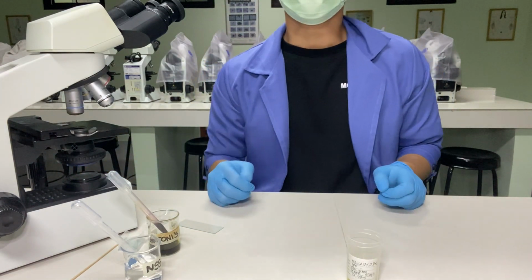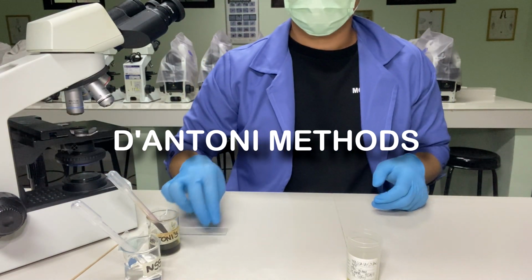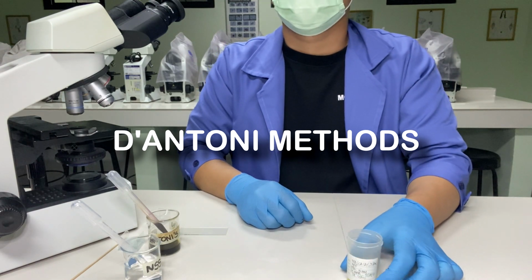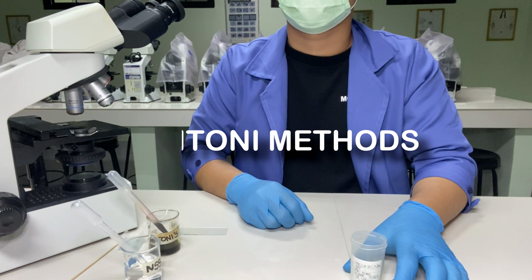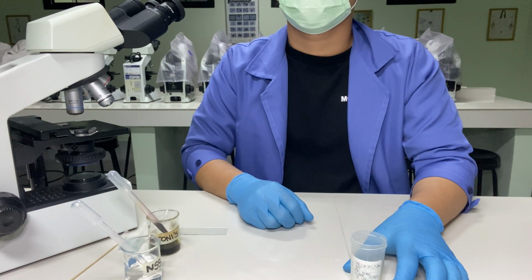For the next activity, we will go now to the D'Antoni's method. The D'Antoni's method is performed to detect protozoan cysts. Their morphologic appearance is enhanced clearly with the addition of iodine solution, which acts as a stain.